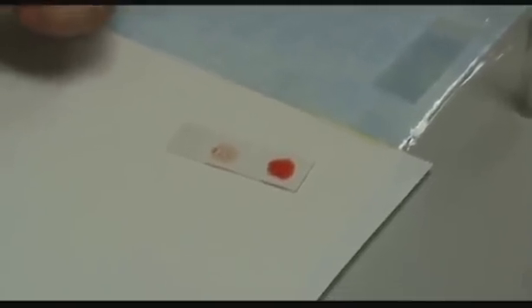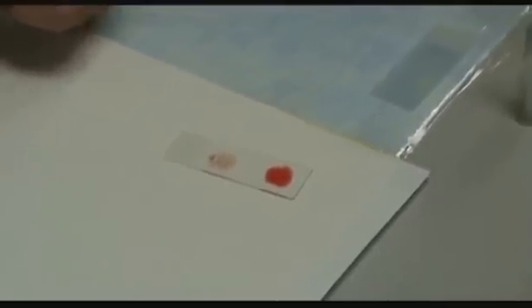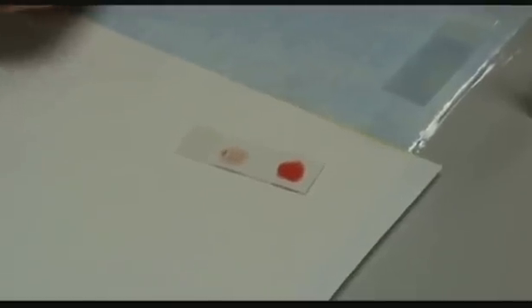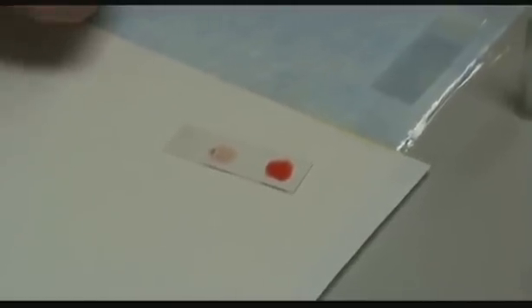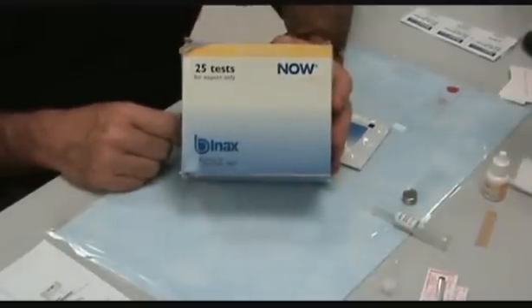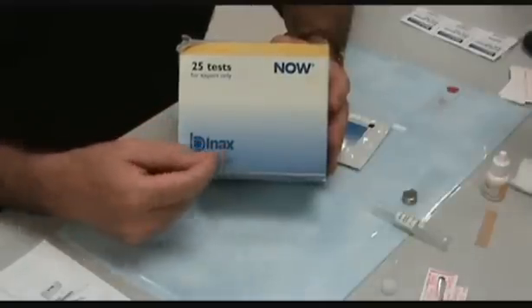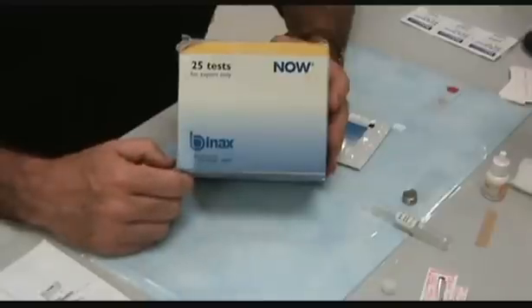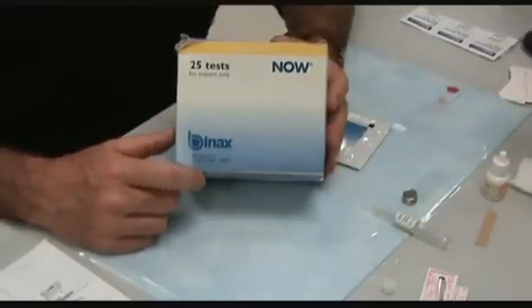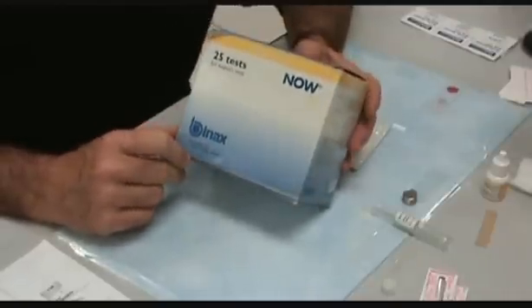During lab today, I'd encourage you to try and take a look at thick smears. Please ask questions of your laboratory assistants who are in the room. But in terms of diagnostic features, you should focus on the thin smears. Here's the rapid diagnostic test or RDT for malaria. This is the product that actually recently gained FDA approval. It was previously made by a small company in Maine called Binax, who has subsequently been bought out by a company called Inverness, so it's now called the Inverness Now test. The ICT is the generic name.